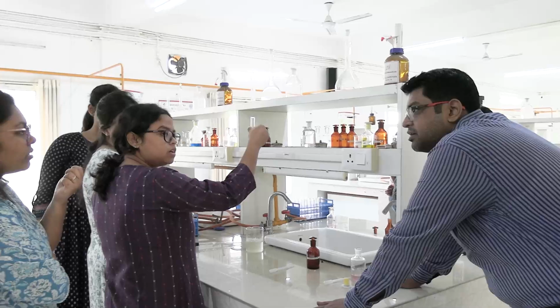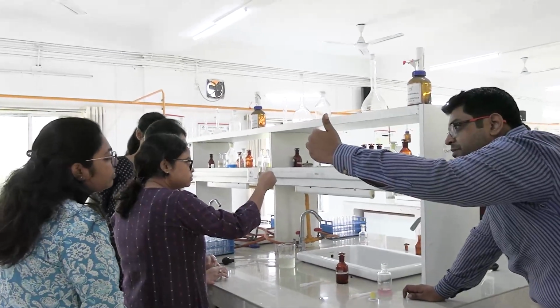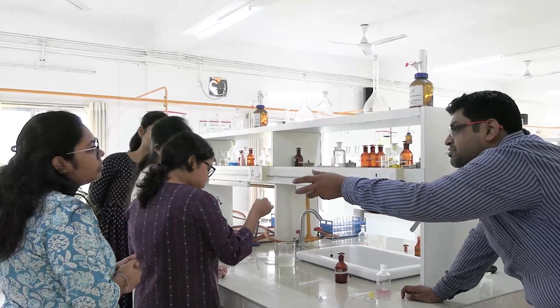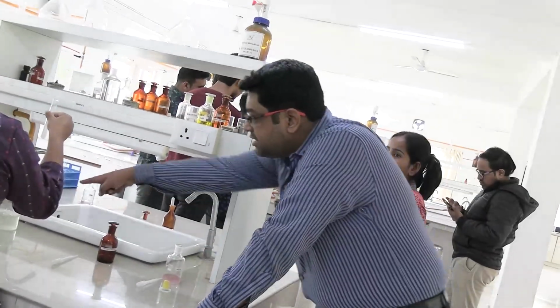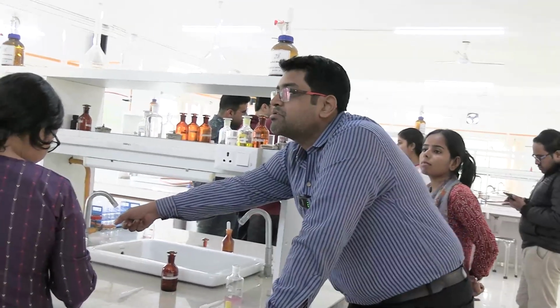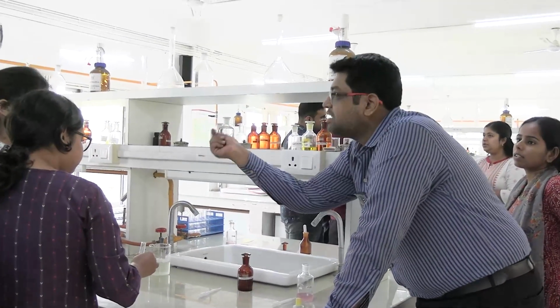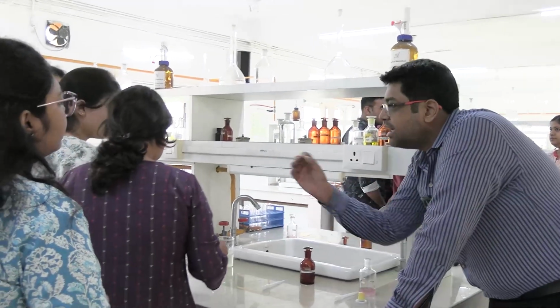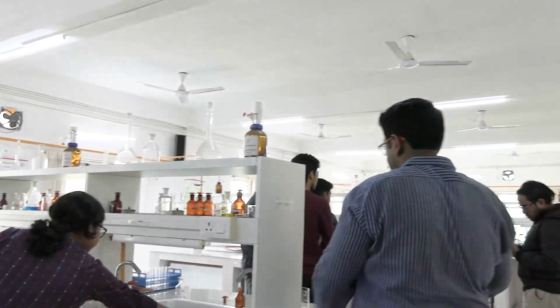No, it will not be transparent color. It will become cloudy only. But here you will have a little bit cloudy, a little bit transparent. So it is easier for you to observe the flocculation process. If you shake it, that flocculation is going to break and it is going to be present in the entire test tube. Okay, and you see the protein itself, the sample itself is a little cloudy due to the presence of high amounts of protein. Then it becomes very difficult for you to appreciate whether it was like this only or whether it appeared after you put in the sulfosalicylic acid. Okay, that is why I am asking you, you do not shake it. You let the flocculation be. Okay, now just drop the contents, wash the test tubes and send the next people in.